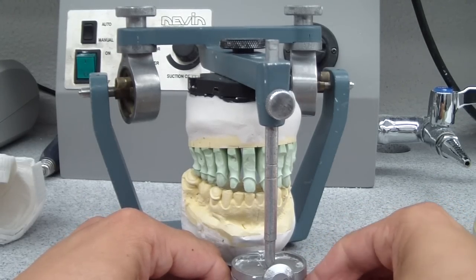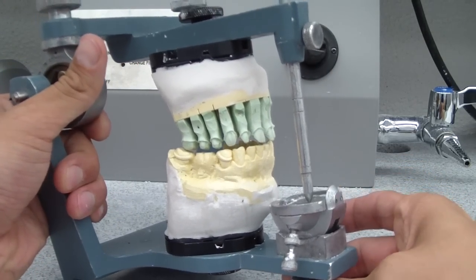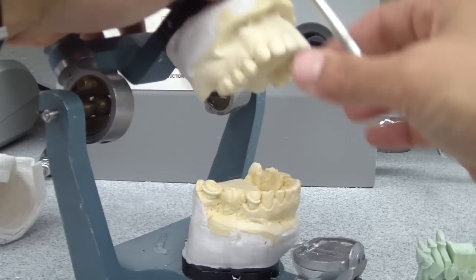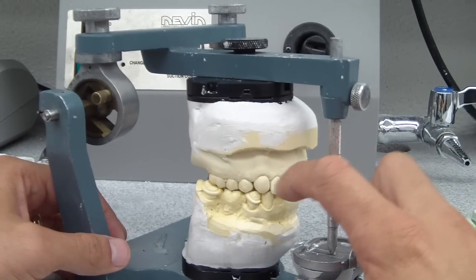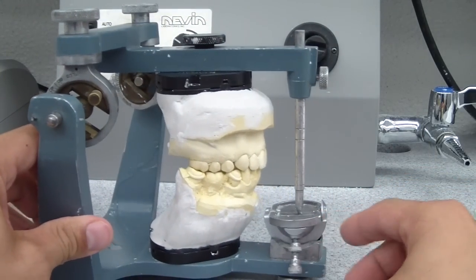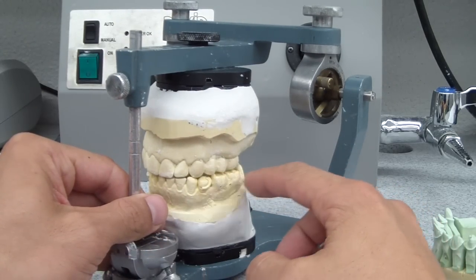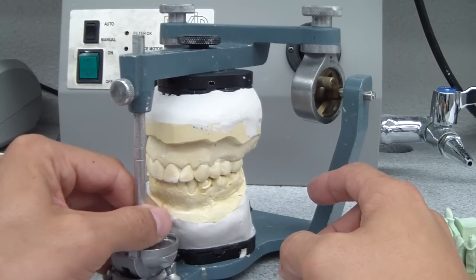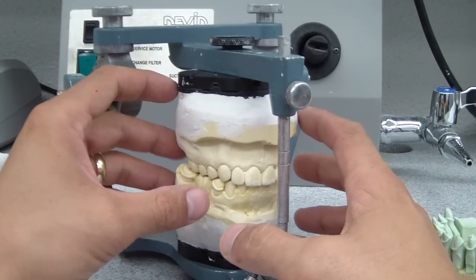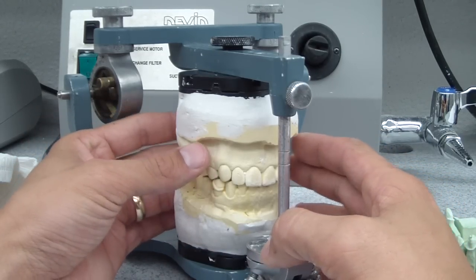So what we're going to do is we're going to make a custom incisal guide table using whatever kind of resin — it doesn't really matter. Here's a cast of the patient's provisional restorations and I'm happy with the anterior guidance that I've established. So I could use the mechanical table. You see how there's these excursive patterns that we've established — it's going to be canine guided. We typically will use it at different times. We're just going to make our custom incisal guide table based on our provisional restorations.